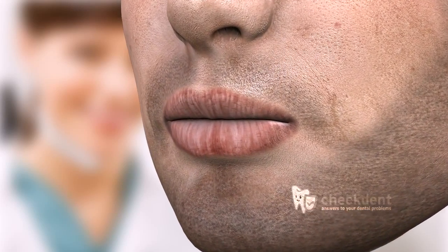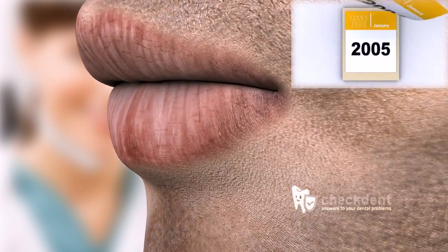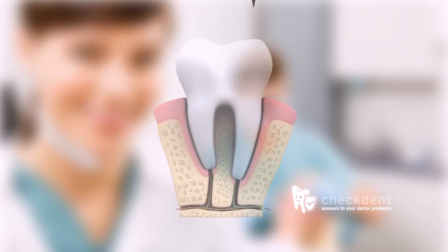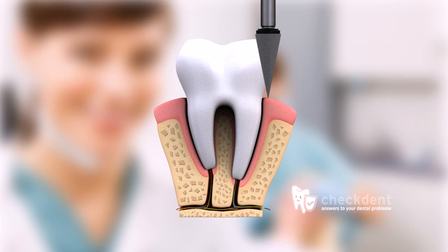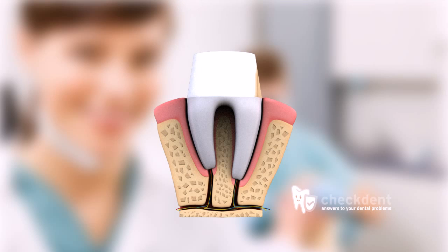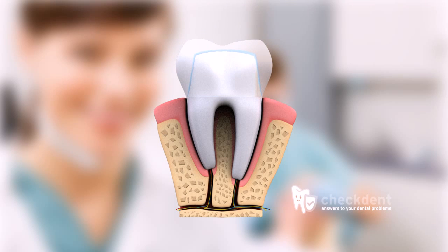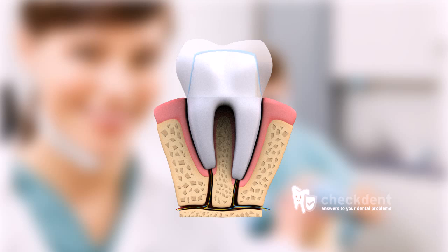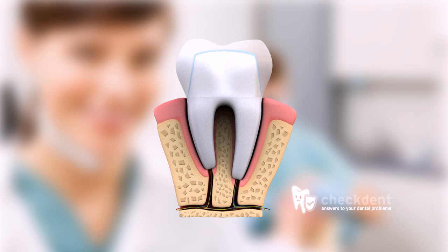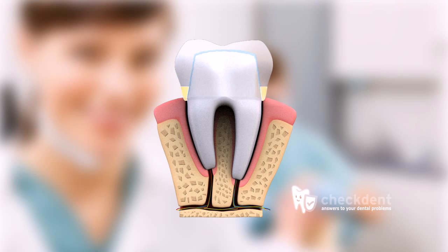Differences between dentists do exist with regard to the fabrication of crowns from the functional point of view. This is why some crowns last for 30 years or more, whereas some last for only a few years. A crucial factor for durability is the manner in which the tooth was ground or cut by the dentist. A quick and easy way is the so-called tangential abrasion, where the tooth is simply beveled. The disadvantage of this technique is that the technician has to leave a certain residual thickness of the ceramic while fabricating the crown.